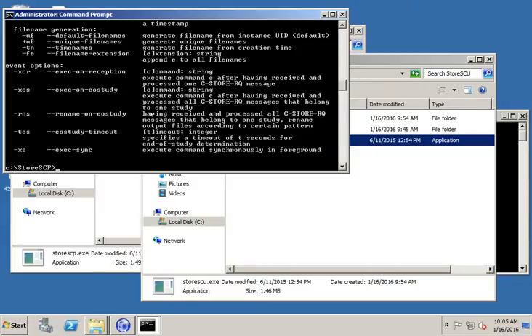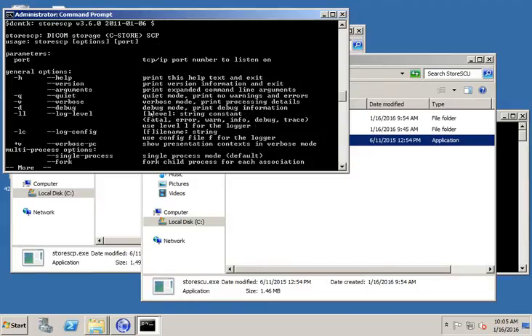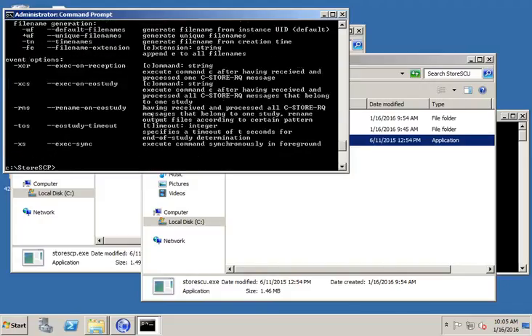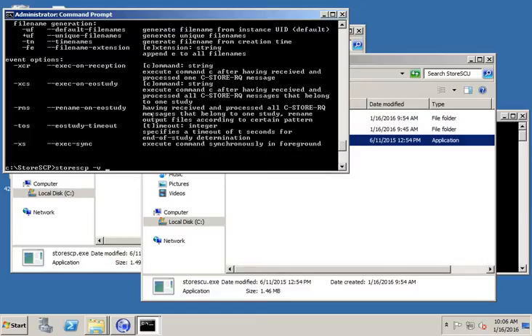If you don't want to have to scroll up and down, you could pipe it to something like more, and then you can scroll through the options if you like. But either way, we're going to run storeSCP. I know that I want to run it in verbose mode, so I do dash v. That's going to show all the output. If you don't run it in verbose mode, you won't see any output. It'll just see files showing up in a directory. So I'm going to run it dash v so we can see all those messages.